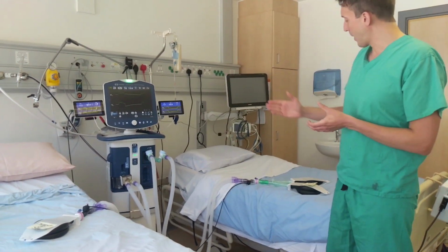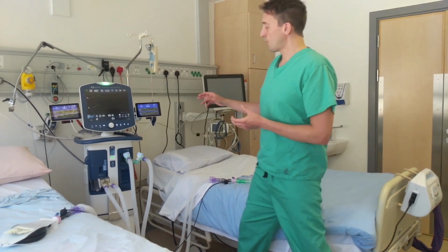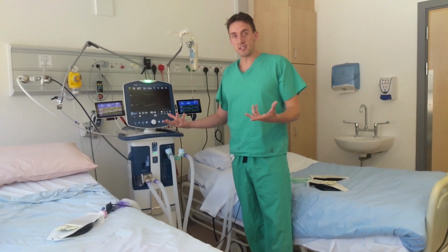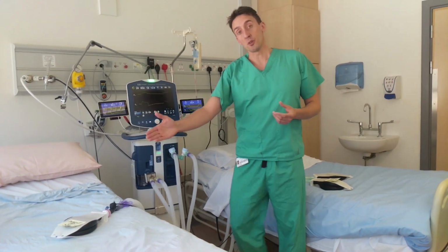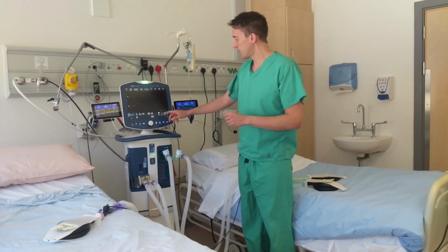Obviously, the first order of priority is to increase this patient's tidal volume. Knowing that we're going to increase the pressures in the system, we have to ensure that we protect patient A. So we would suggest something like the following.